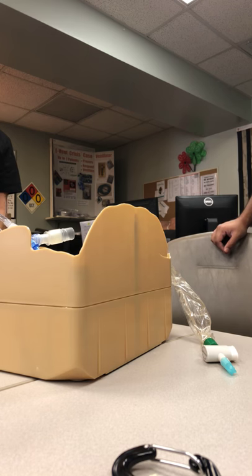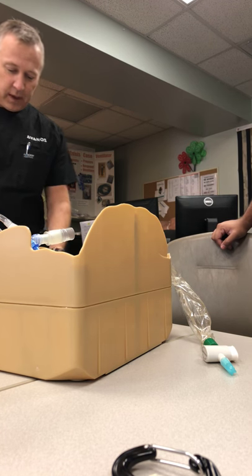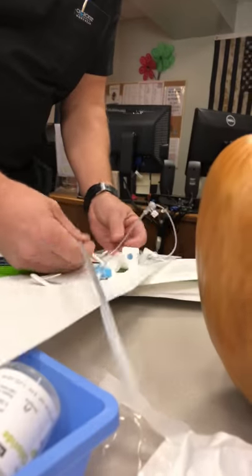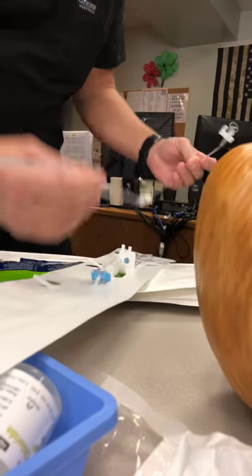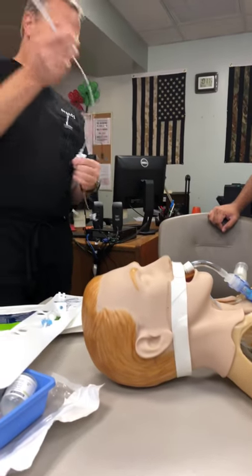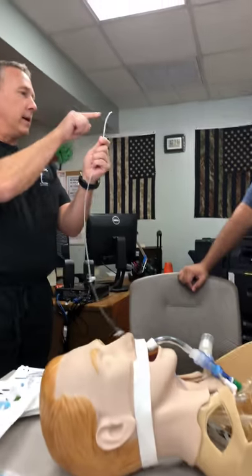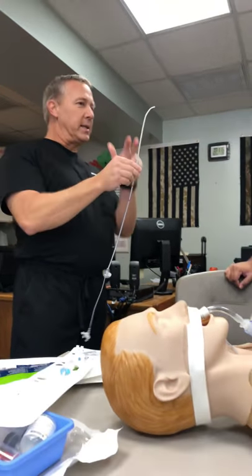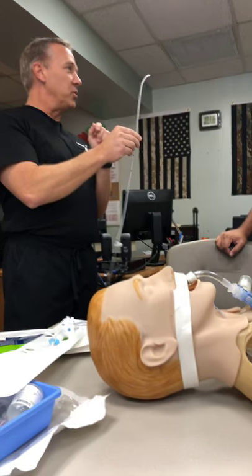As far as the product goes, this is what the product looks like. We open up the package to place a clean procedure that we run as sterile. Pull it out, and it's basically just a catheter inside of the catheter. Looks like this, we pull off the tip, and then we can go ahead and advance that. One difference between this and some of the other products out there is a coude tip and it's a mushroom tip.